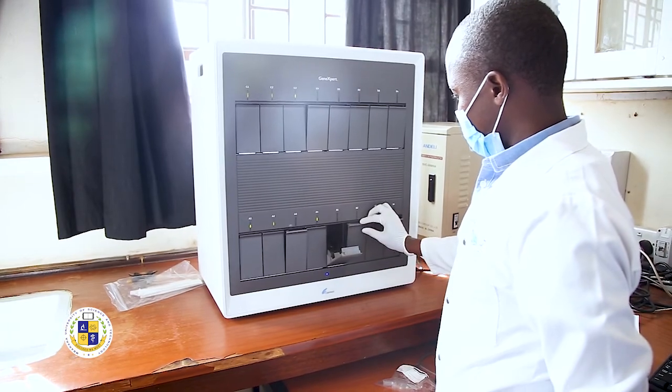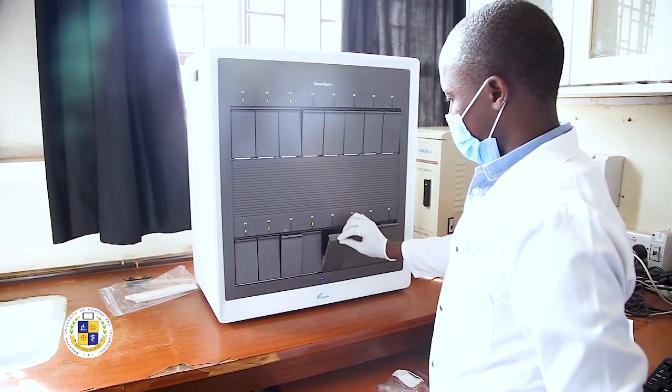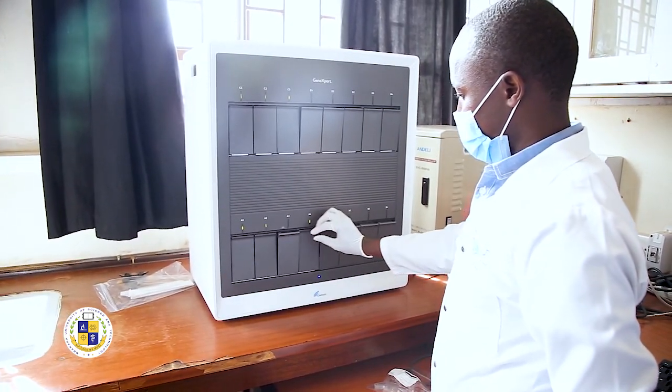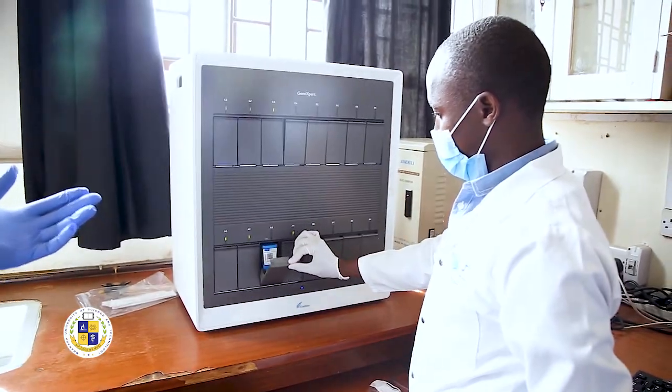We have seen the other lab where we have a GeneXpert, which is a machine that originally came in to test for TB, but has now been used to test for COVID. So it is able to test for COVID in here.